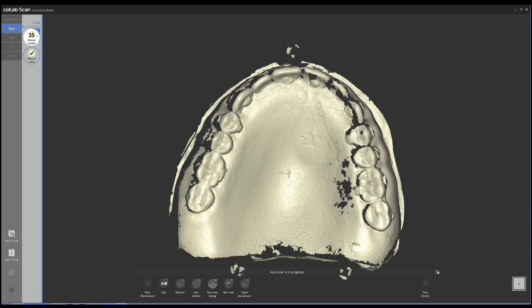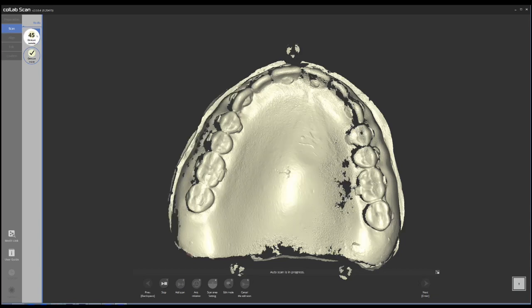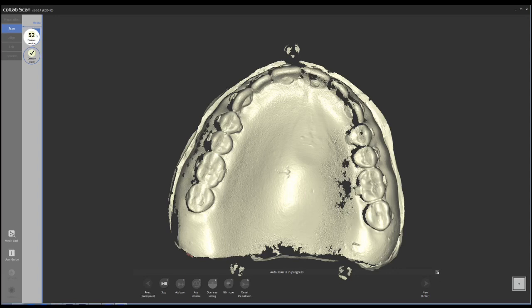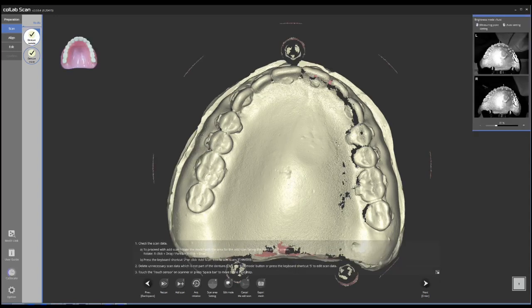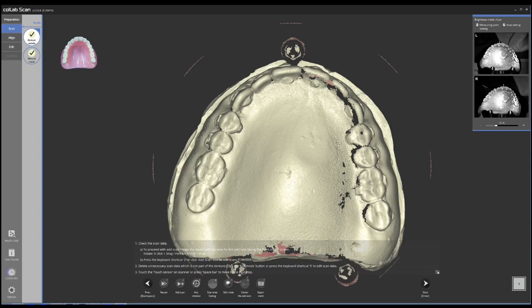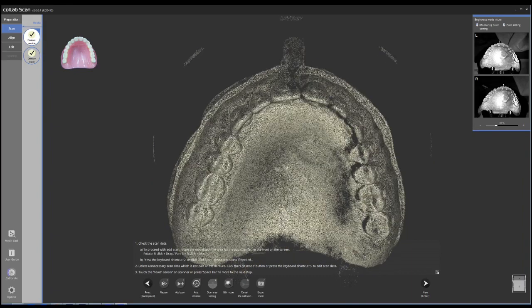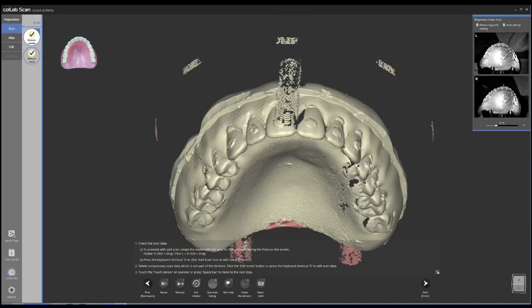The scanner basically gets all the data that I need. I'm going to end up with two parts as you will see: the outside and inside. Now the software, in this case MEDIT lab, is going to process that information and I'm going to merge the two parts.